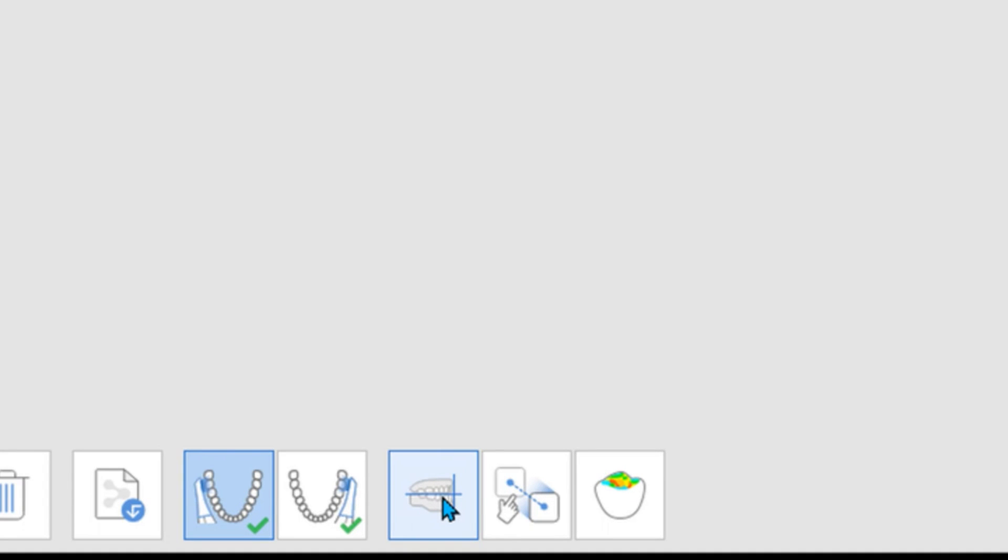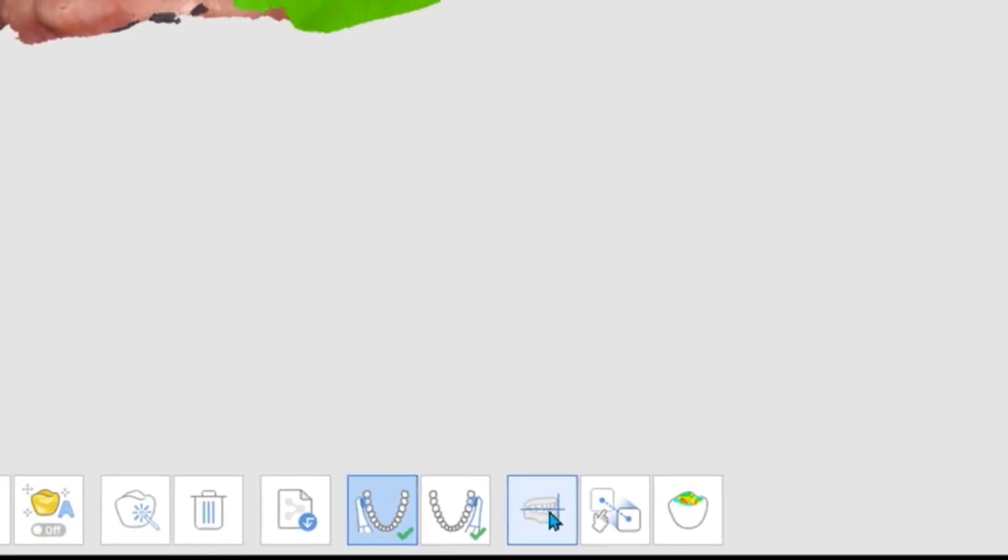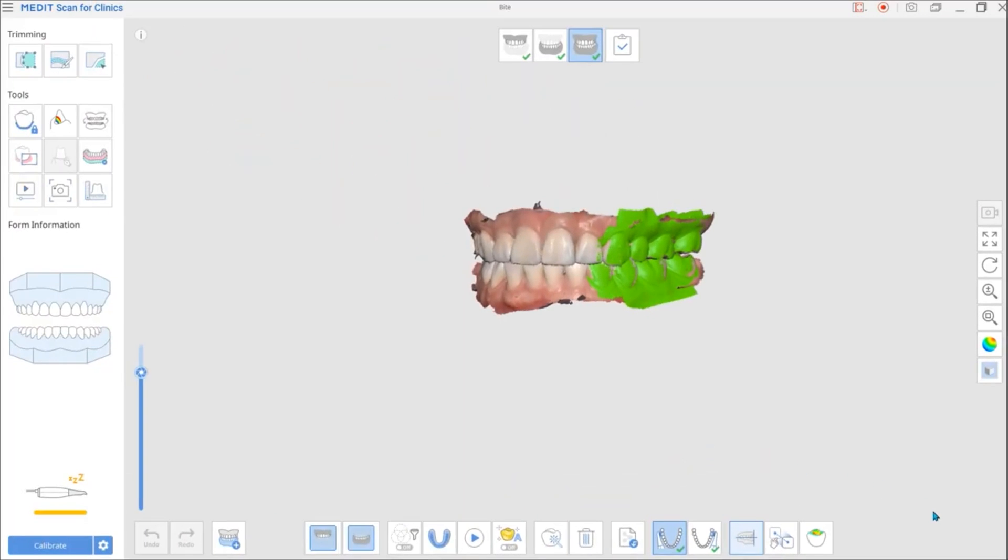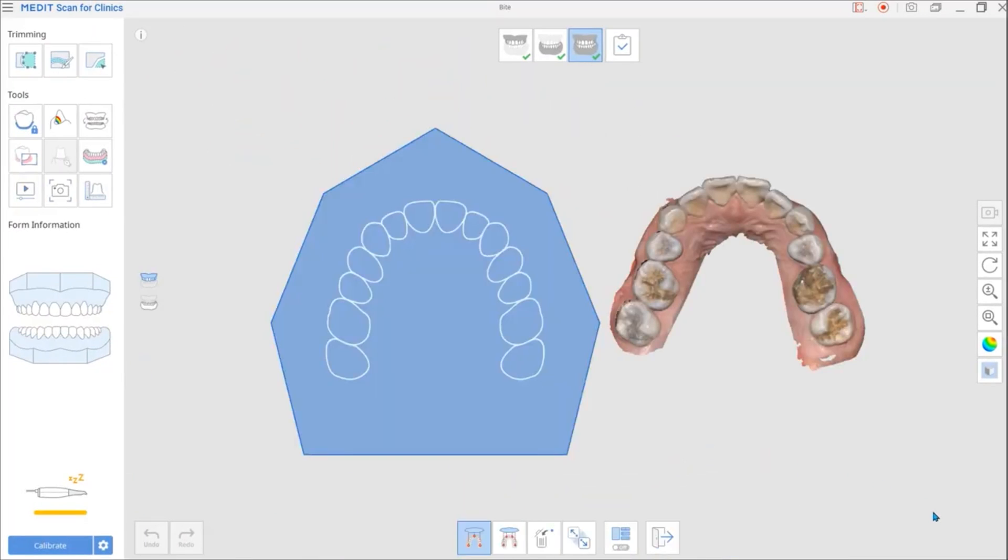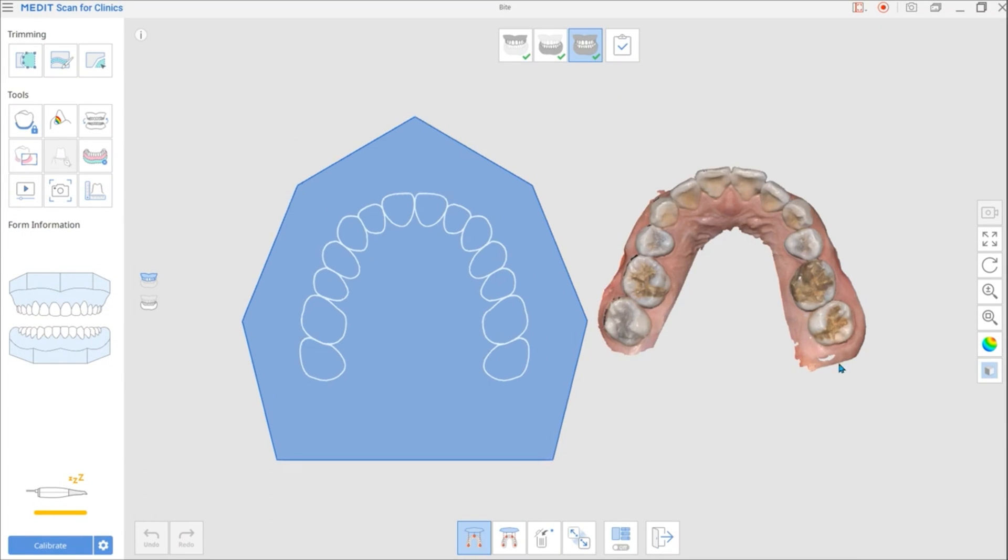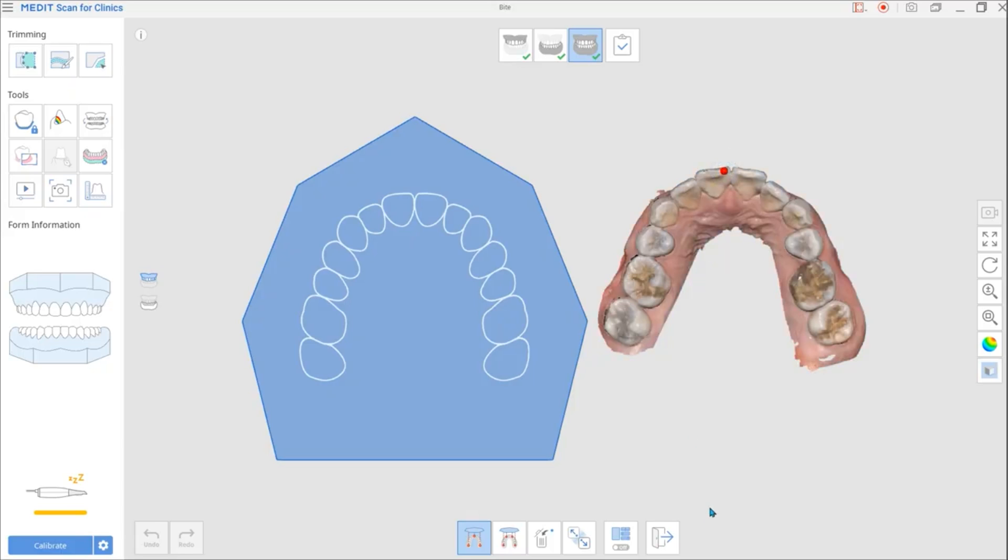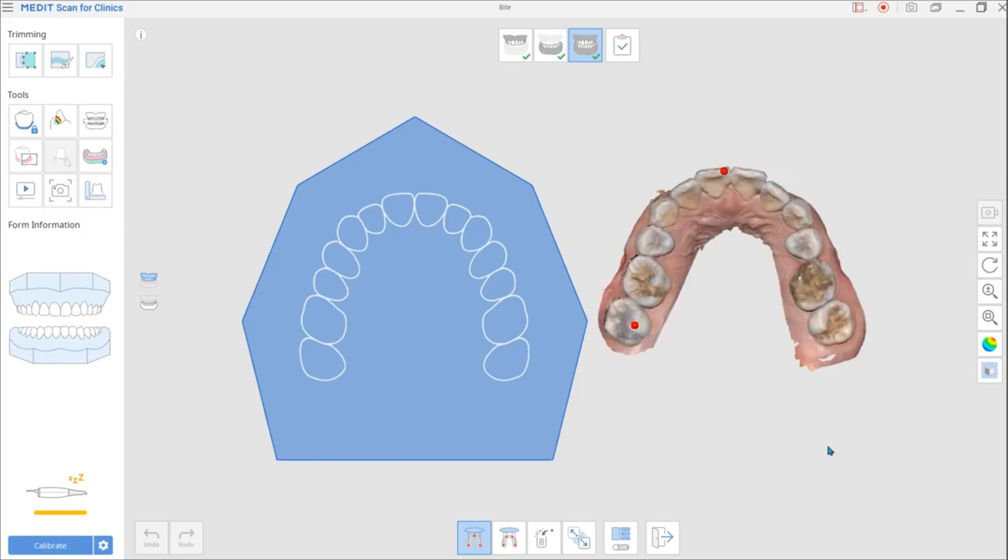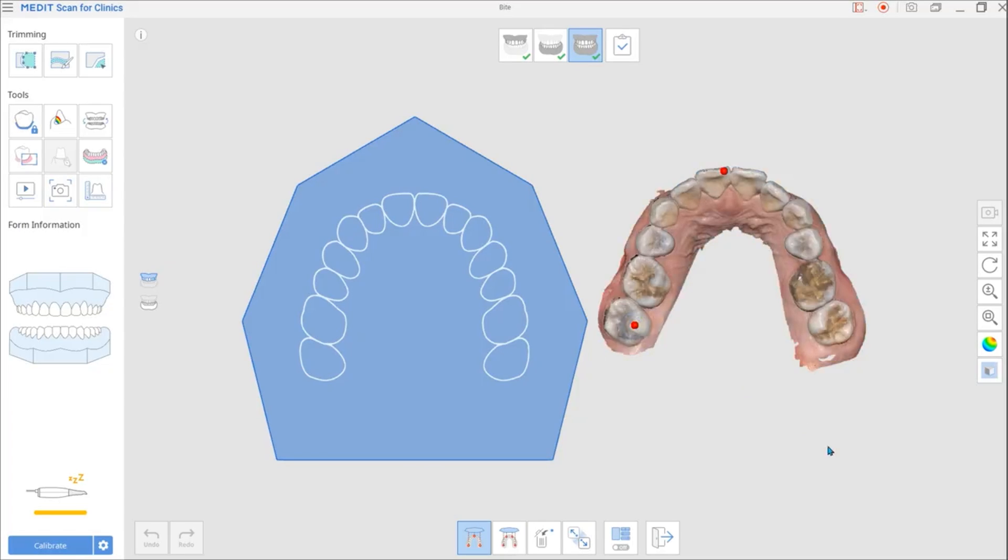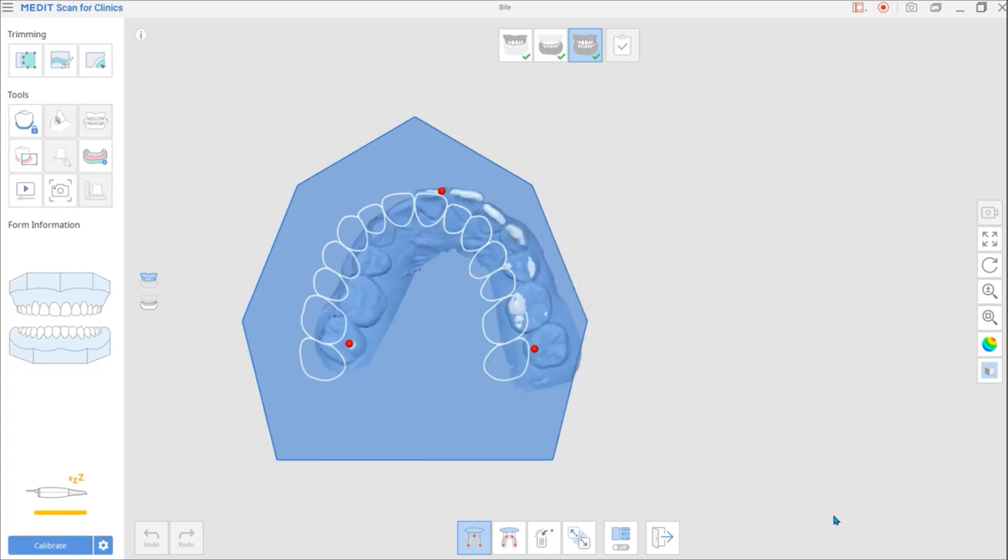Click Align to the Occlusion Plane after the occlusal alignment is done. Select three or four points on the jaw. If the jaw has no anterior teeth, we recommend placing three points on the cusps of the corresponding teeth. One point goes in the middle and the rest lies on the cusps of posterior teeth.